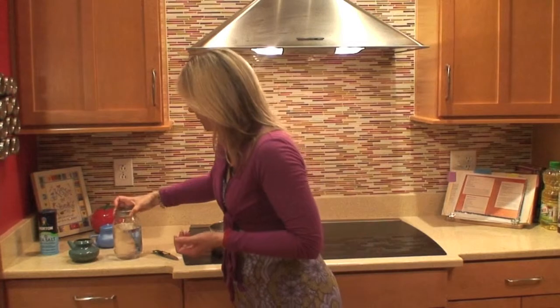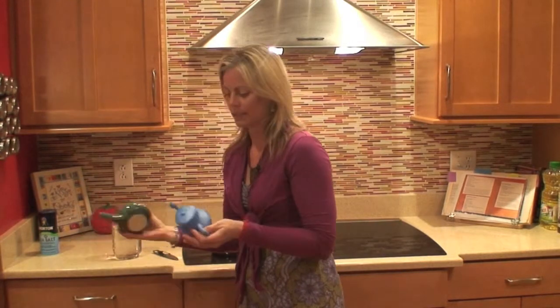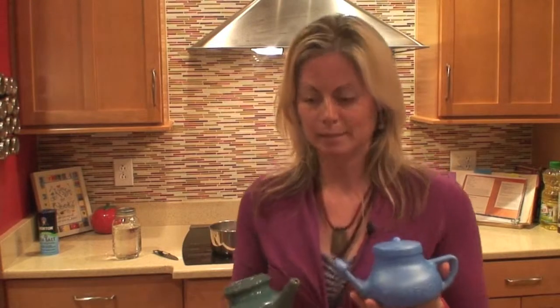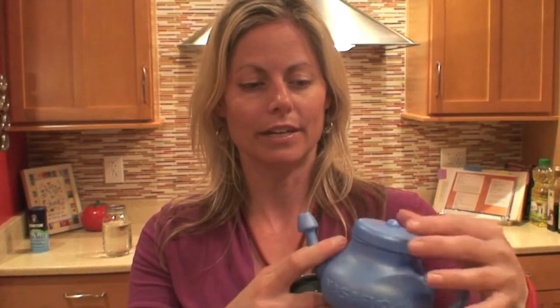So when you're going to use the neti pot, there are several different varieties of them that are available out there. This one is made from like a pottery. Just important to make sure it doesn't have any lead-based paint in it. And this one is one that you'll commonly find like in a Walgreens or any other grocery store, any other drugstore that has a lid on it as well. And some people find that handy because then the lid doesn't spill out of the top.